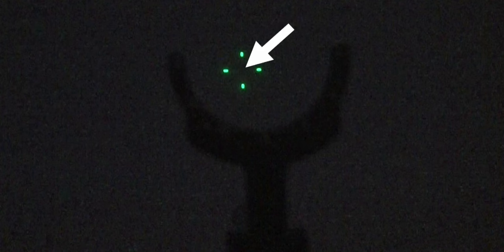When the test begins, you will see a central target marked as a steady light inside a black hole. Or in other machines, this may be a green cross. In order to obtain reliable results, it is important to keep your attention on the central target during the entire exam.